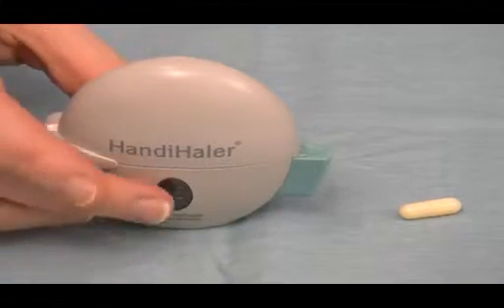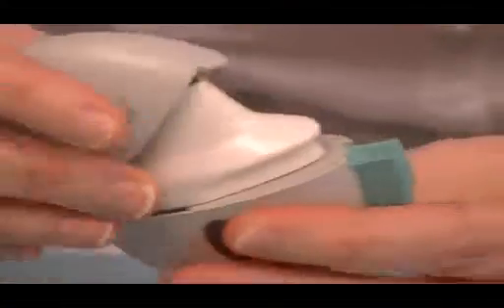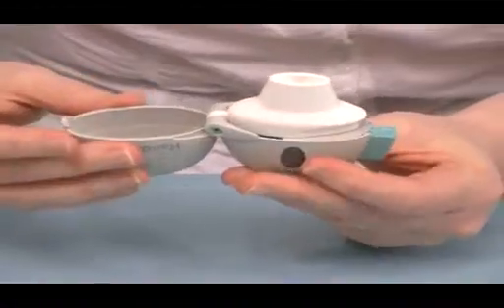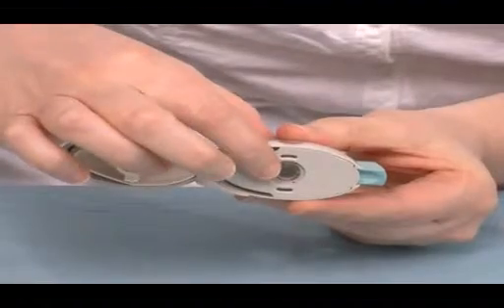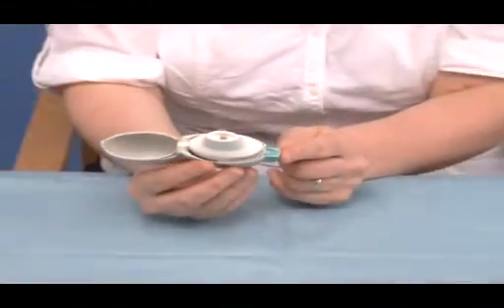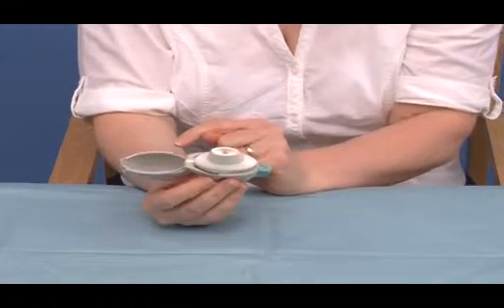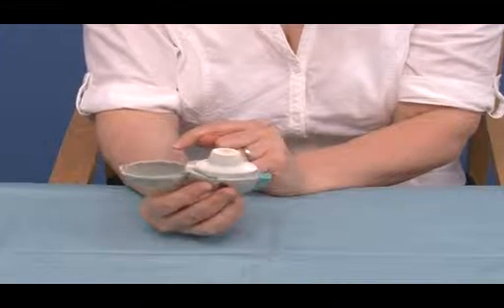The next inhaler we're going to look at is the Handihaler, which again is a dry powder inhaler, but this time comes as a capsule. The patients open up the device and open up the mouthpiece, and this is the area where the capsule would go into. They insert the capsule, they close over the mouthpiece, they depress and release the button at the side. This then punctures holes in the capsule to allow the release of the dry powder. The device is now ready to use.